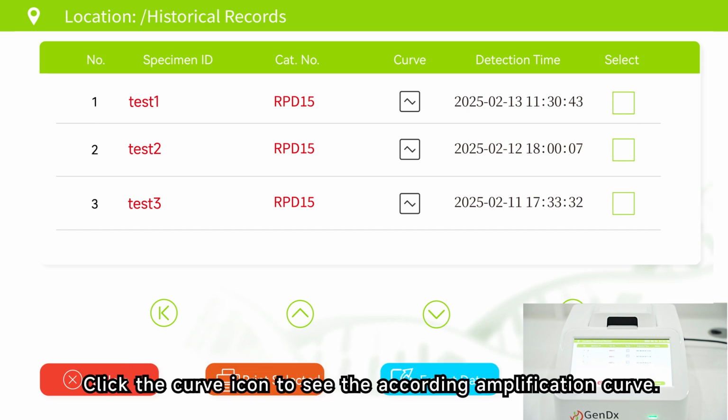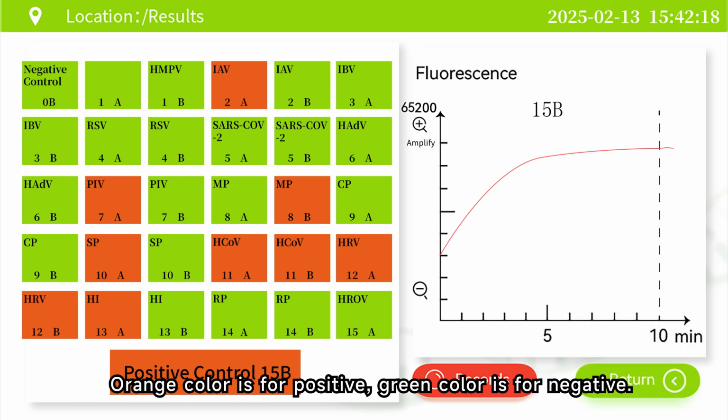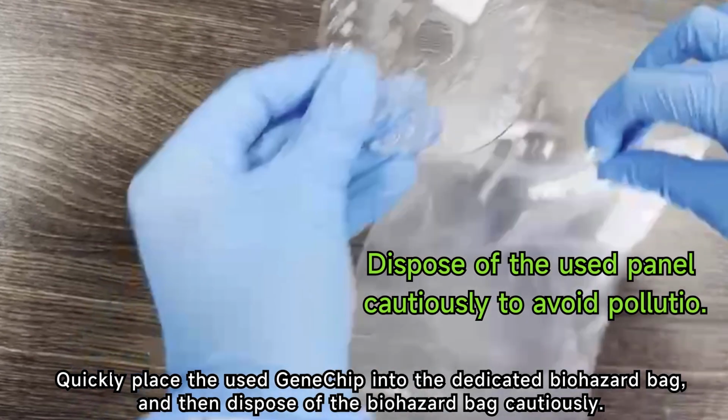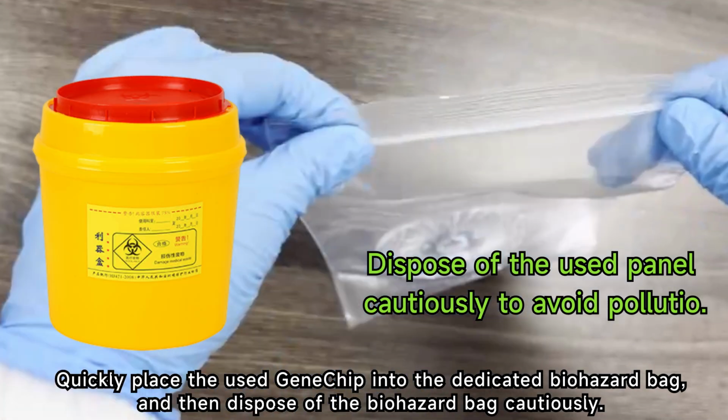Click the curve icon to see the corresponding amplification curve. Orange color is for positive, green color is for negative. Quickly place the used gene chip into the dedicated biohazard bag, and then dispose of the biohazard bag cautiously.